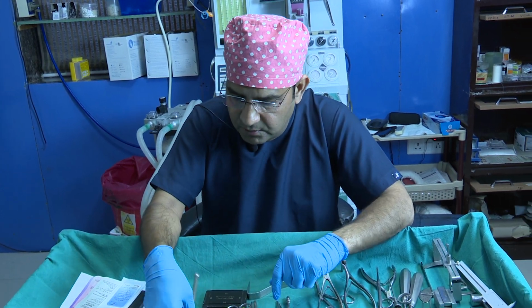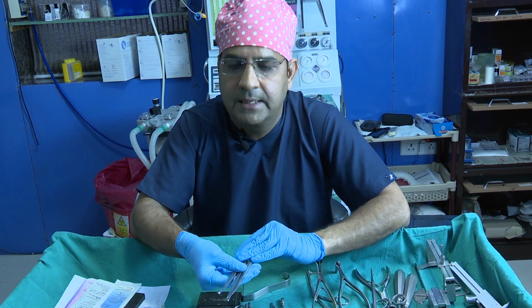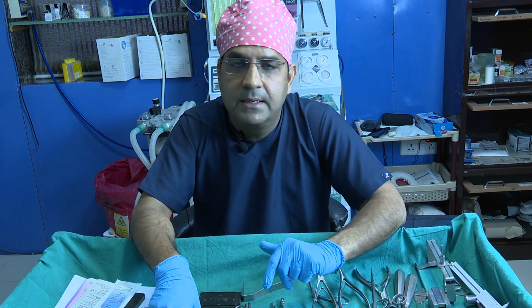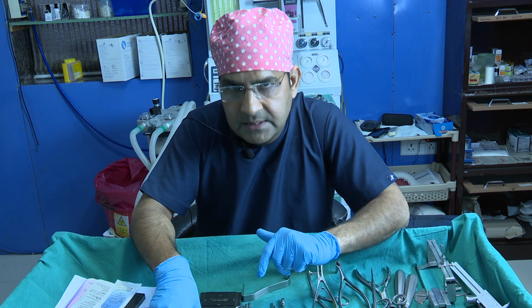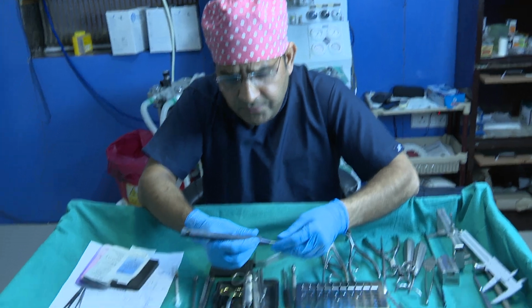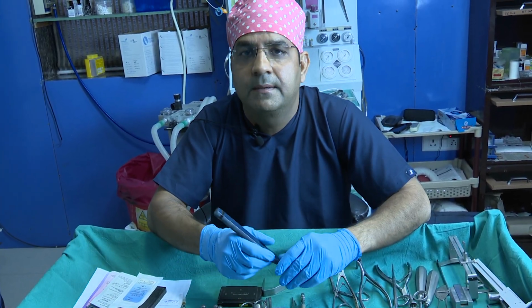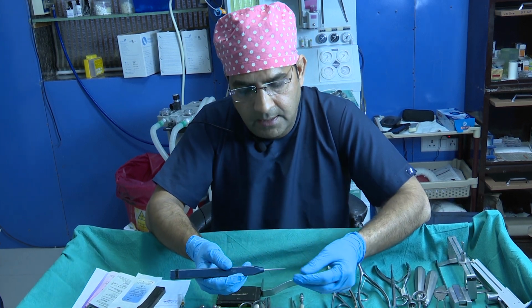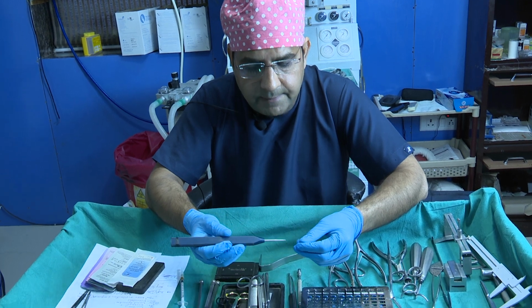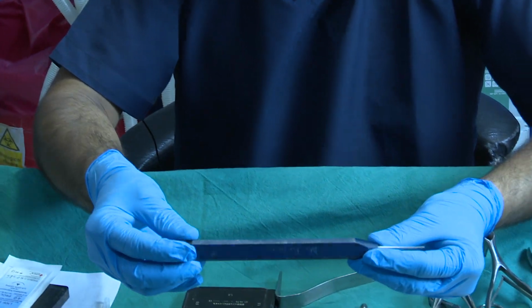These osteotomes are usually Medicon instruments. They are good quality osteotomes, and I think you should have good quality osteotomes, because otherwise you will struggle a lot. Suppose you go for a lateral osteotomy by the external perforating manner, with multiple perforations. Then you use this Medicon 2 mm osteotome. This is the 2 mm osteotome.